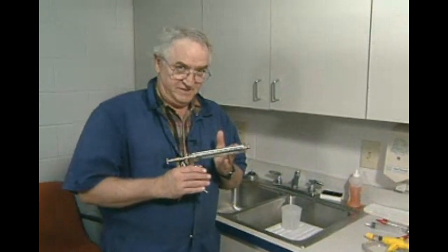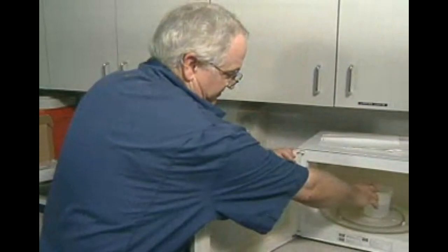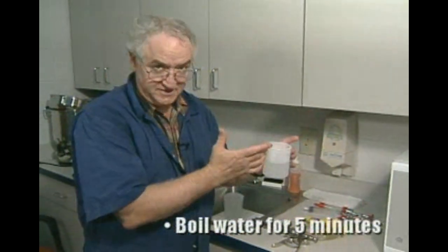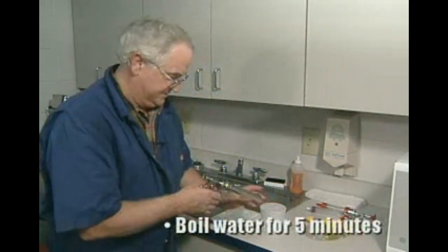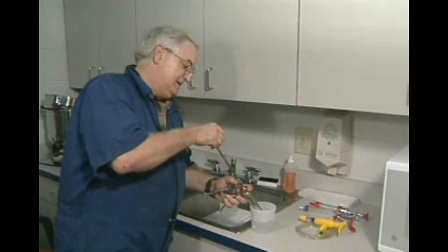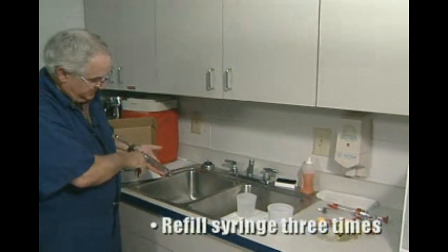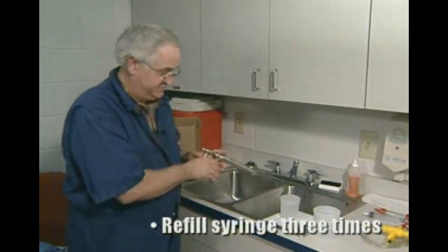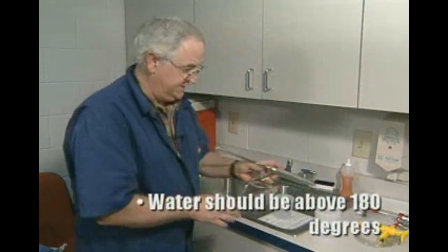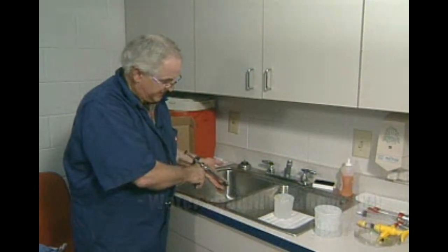Once these syringes have been cleaned, boiling water in a standard microwave — which I've already done for about five minutes, just until it's boiling really well — tightening up the rubbers inside the syringe and refilling the syringe about three times to flush it out. As long as that boiling water is still above 180 degrees, it will meet standard sanitation practices.